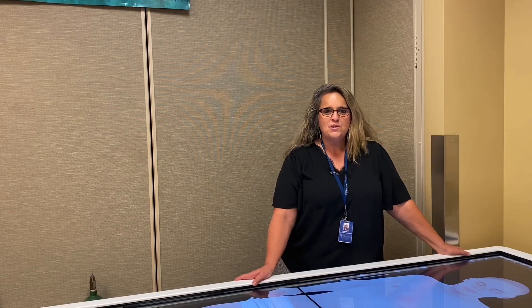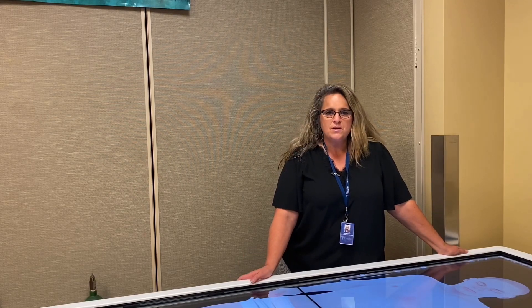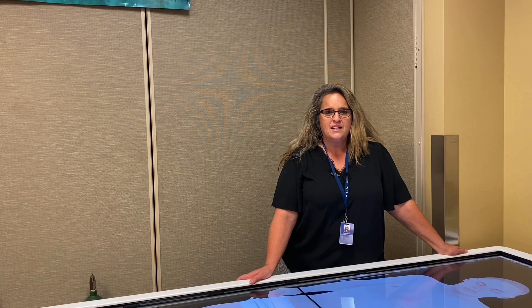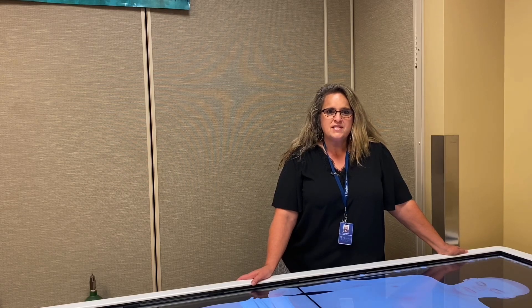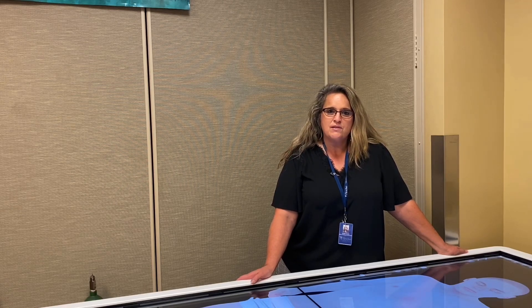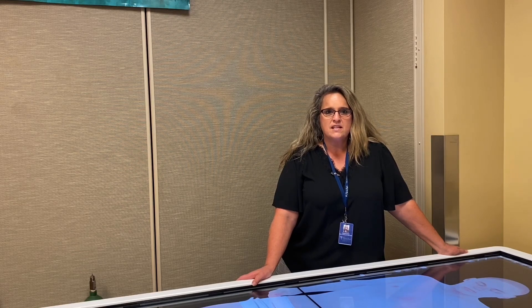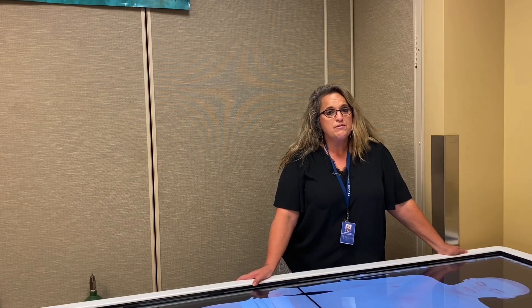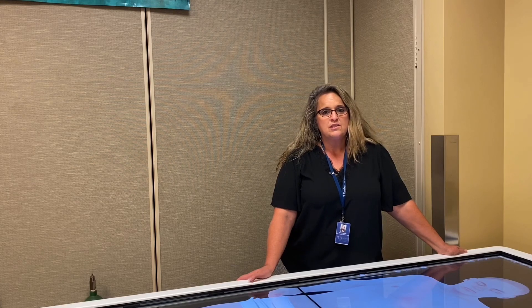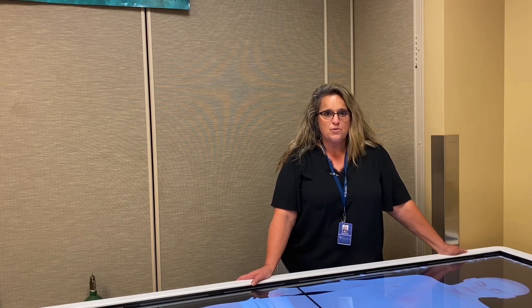Today I wanted to present to you one of our new pieces of equipment called an anatomage table that we received through a STEP grant here at Fletcher. This grant comes from the technology fees that are paid by the students, and we were fortunate to be able to purchase this piece of equipment.